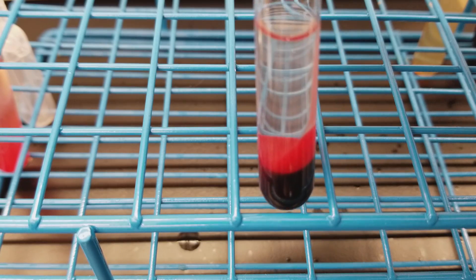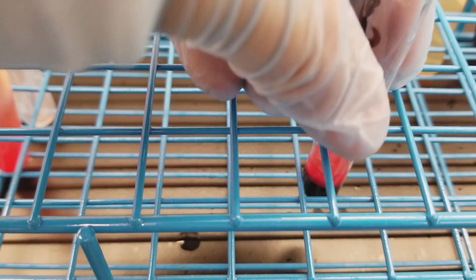Each time you're washing your cells, you'll end up having a lot in there, and that's not the kind of button that you can really pour off. So what I'm doing is using a pipette to pull this off instead of dumping them down the sink, because I was having a hard time keeping the red cells at the bottom and not losing them. So don't be nervous about doing that — that's what you've got to do. That was the first wash with the saline.